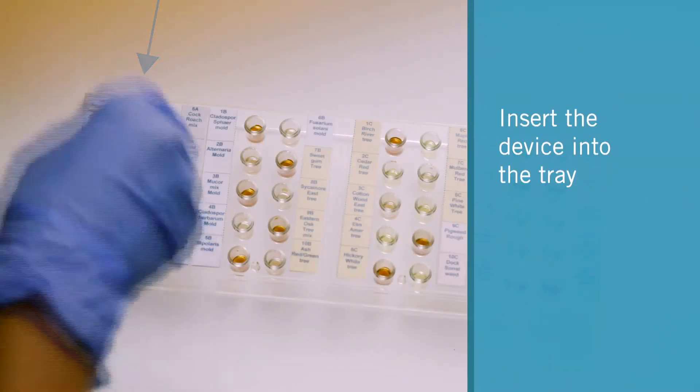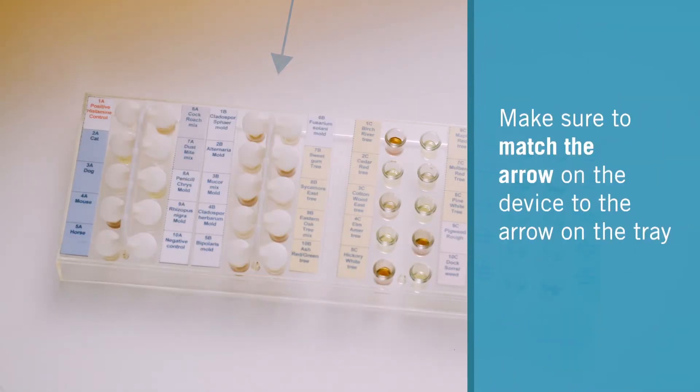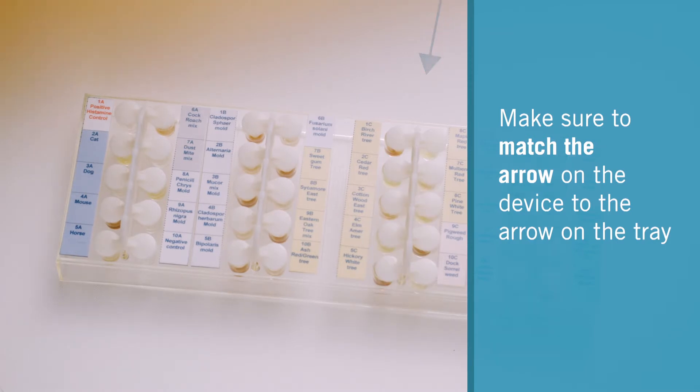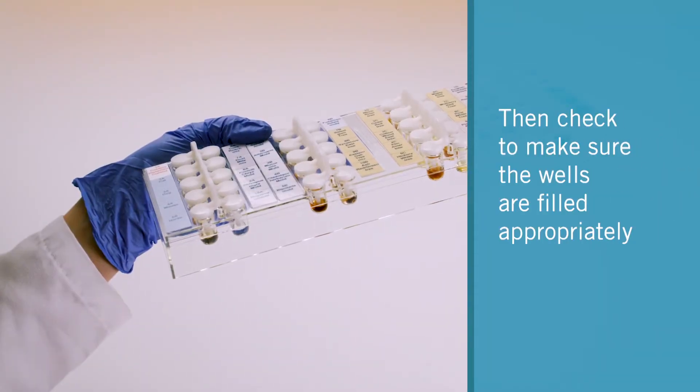Insert the device into the tray. Make sure to match the arrow on the device to the arrow on the tray. Then check to make sure the wells are filled appropriately.